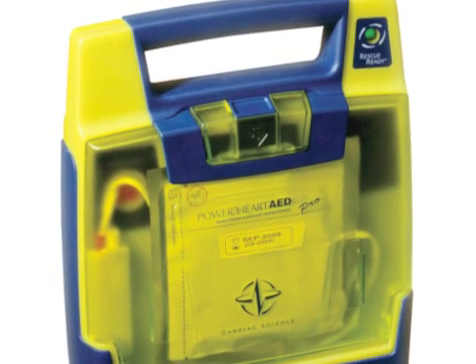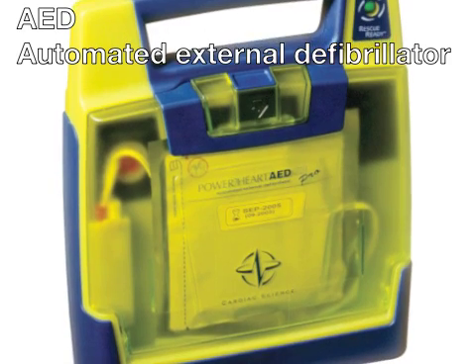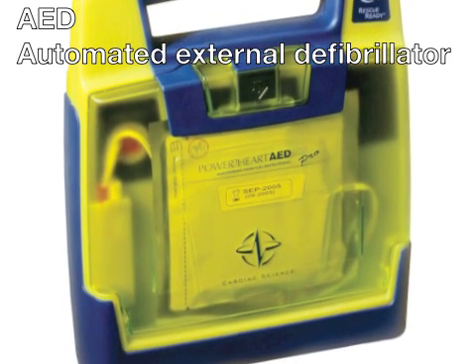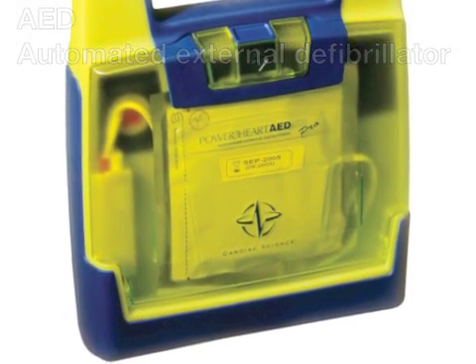Automated external defibrillator, or AED, is a portable electronic device that is used during cardiopulmonary resuscitation.